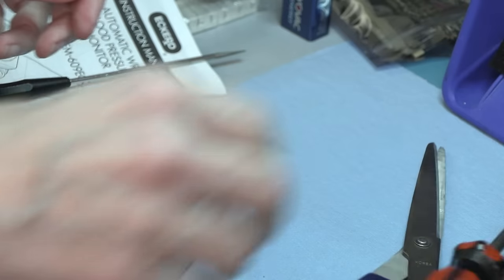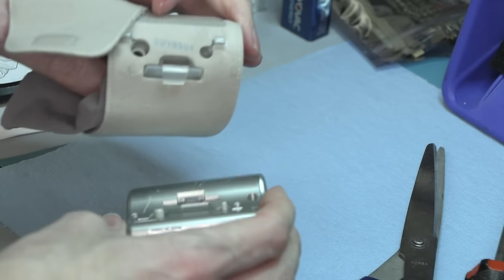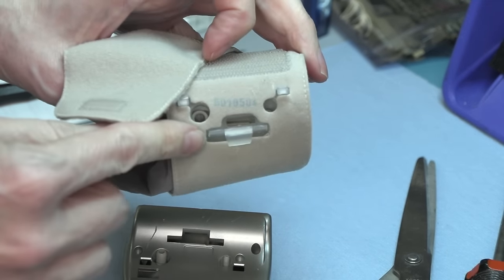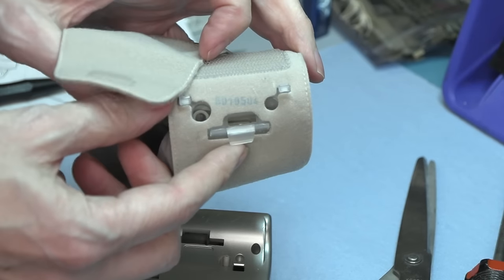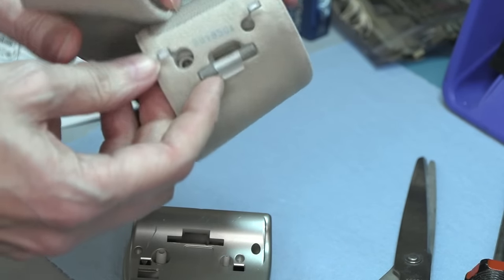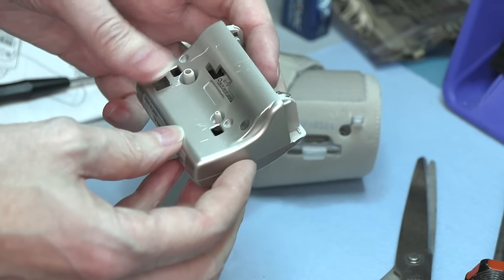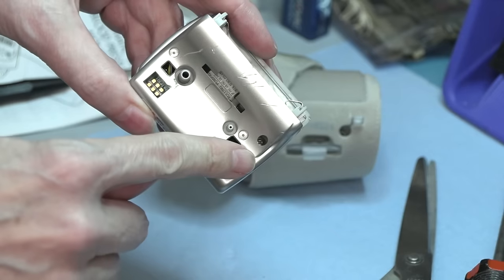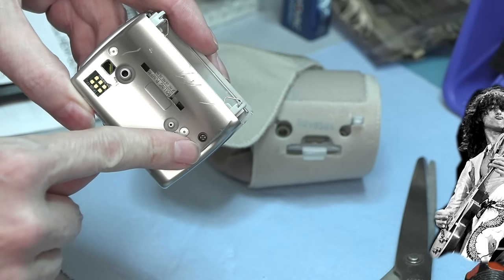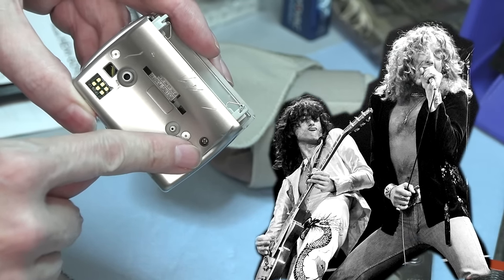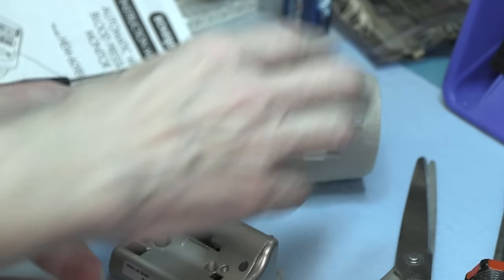I guess if you know exactly where to push the clips that are actually hidden, it'd be easier to get it off. Ah, there's a screw. Way down inside there. Way down inside. Oh, it never gets old.